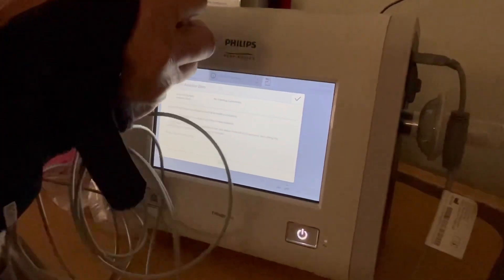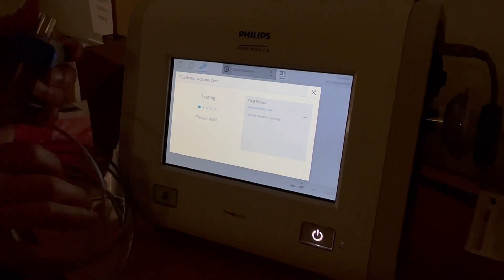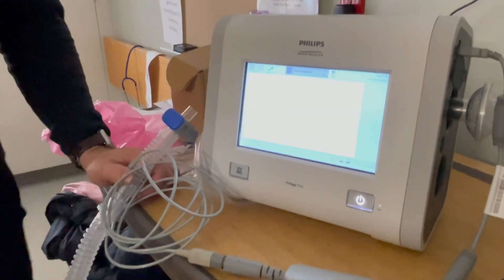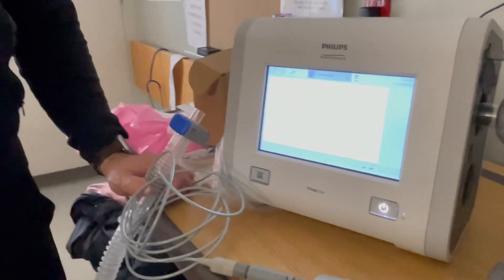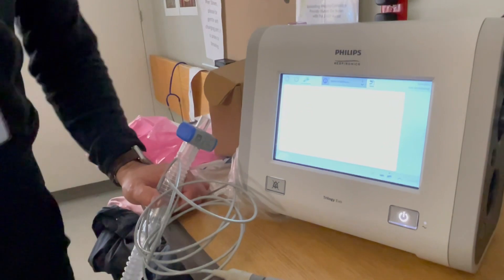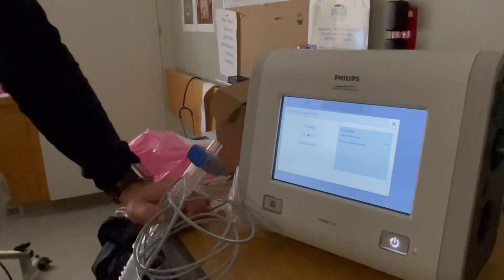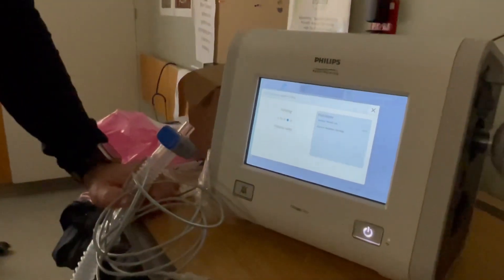I'm going to attach this here. Start. And now it's warming up — I tested it this morning, it takes like a minute or two. Basically it's testing to see how much CO2 is in room air right now, so that when you put the patient on, it can actually measure it. I'll show you where it pops up on the ventilator.